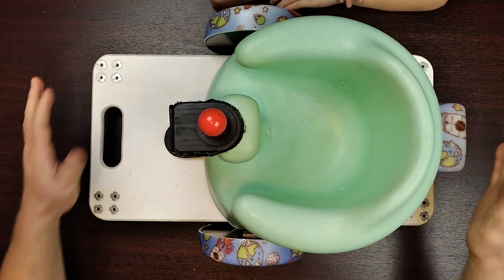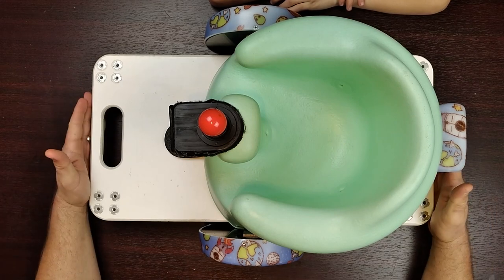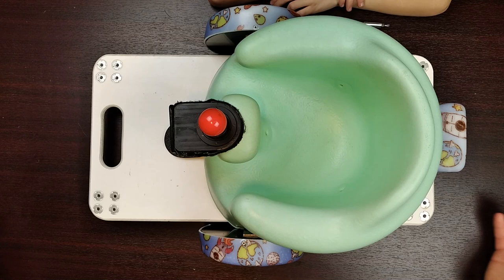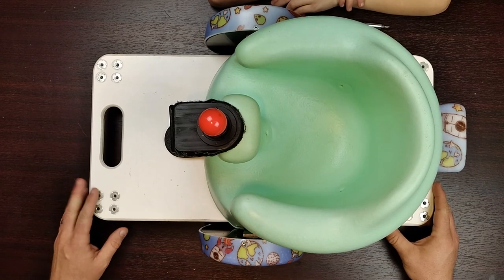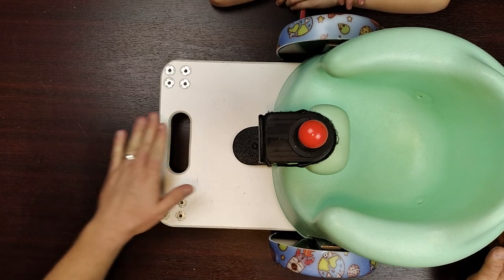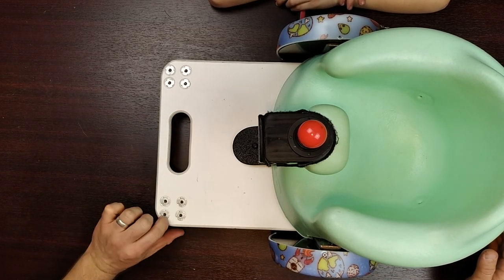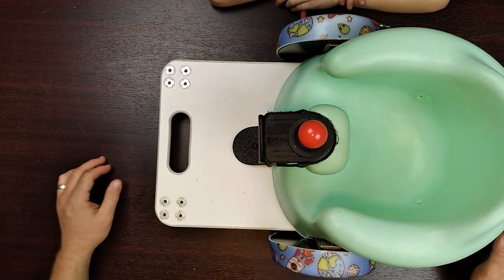What we have in front of us is basically an adapted electrical go-cart slash wheelchair for a cute little girl who needs a way to be able to get around. She does have a normal wheelchair, but this one's supposed to be a little bit more useful for her by herself. She's able to get up onto here - my guess is about an inch and a half to two inches tall - she's able to crawl up into this thing by herself and use it all by herself.